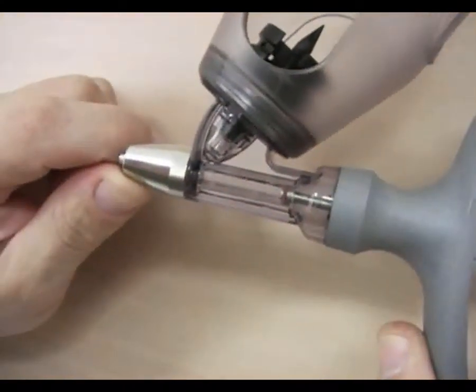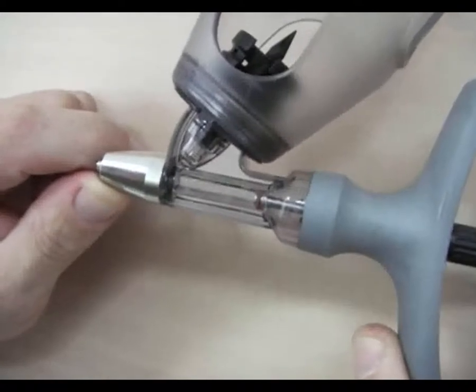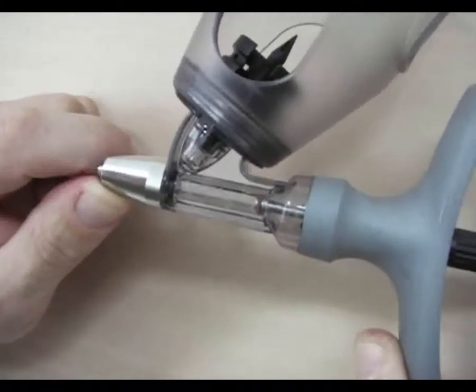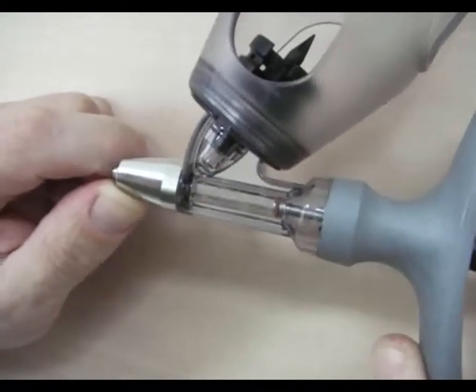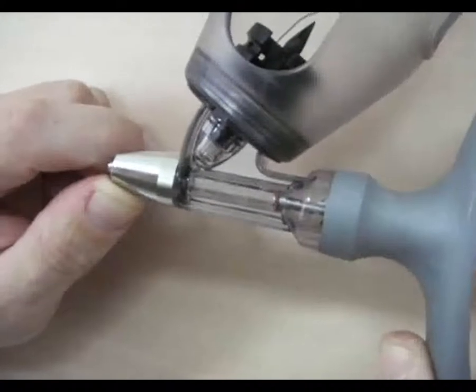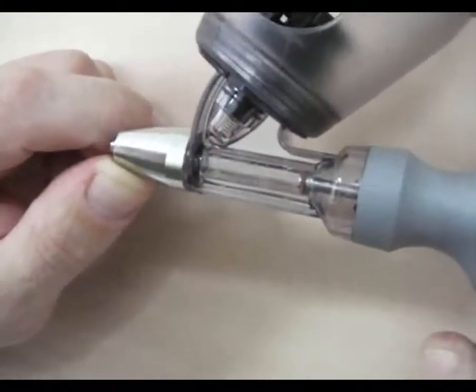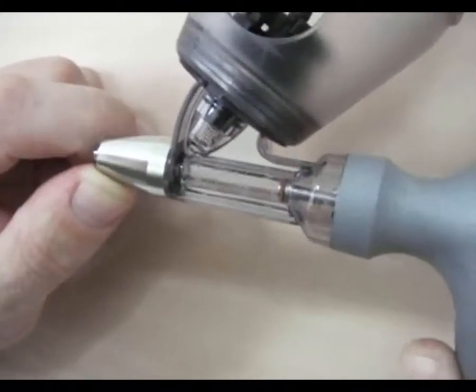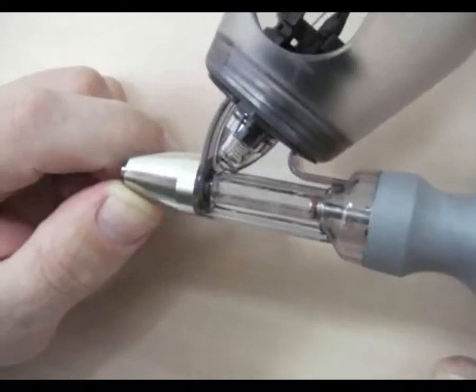Die Zylindergraduierung der HSW ECOMATIC Selbstfüllerspritze 0,3 ml ist in Schritten von 0,05 bis 0,3 stufenlos einstellbar, wobei die Markierungen auf dem Zylinder bei 0,05, 0,1, 0,15 fortlaufend bis 0,3 ml aufgeführt sind.